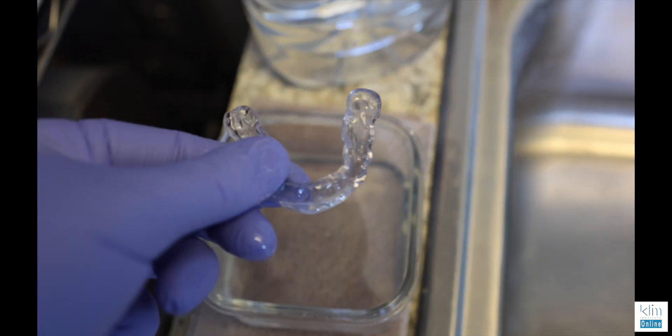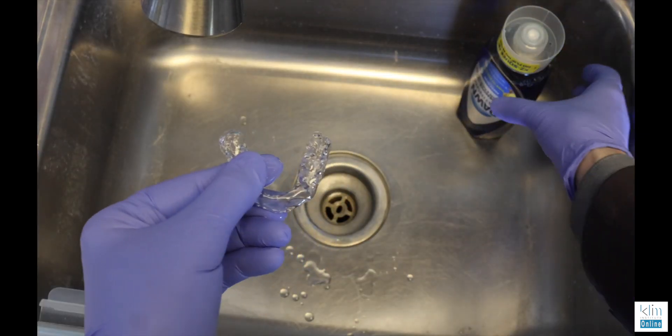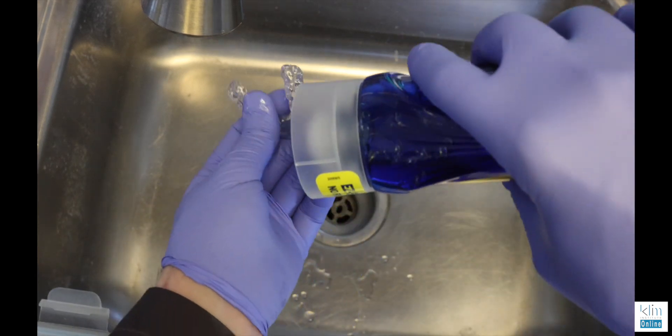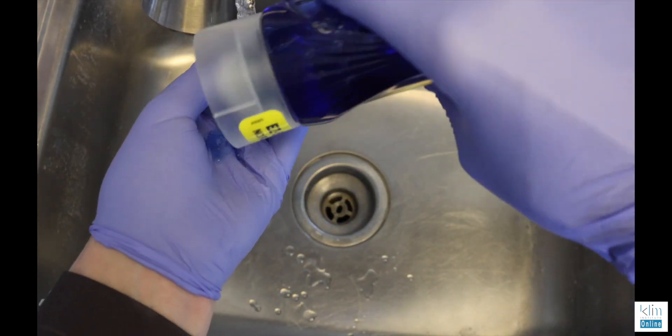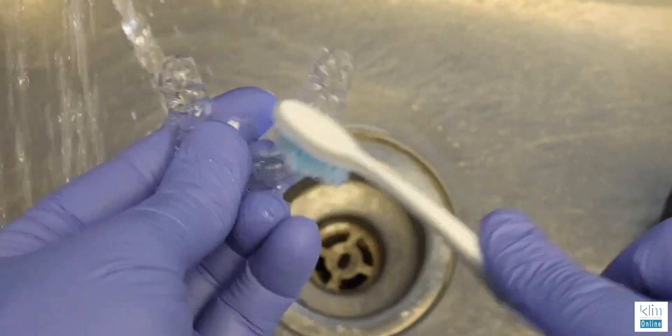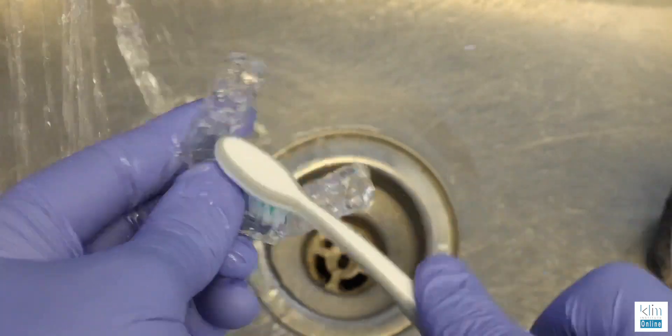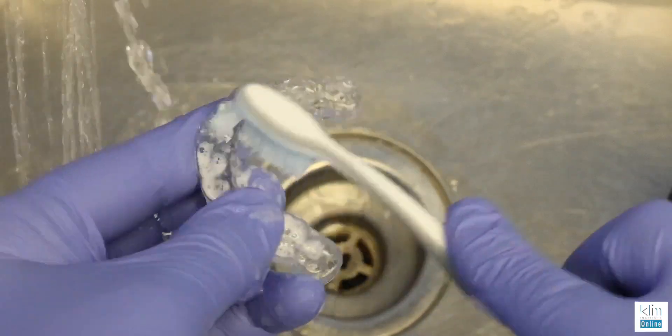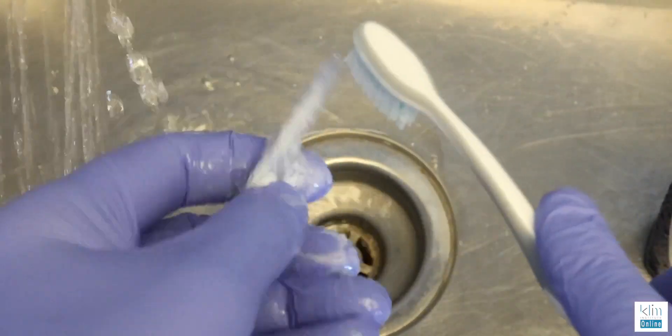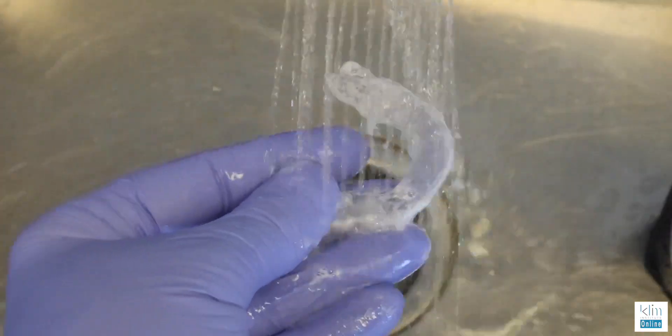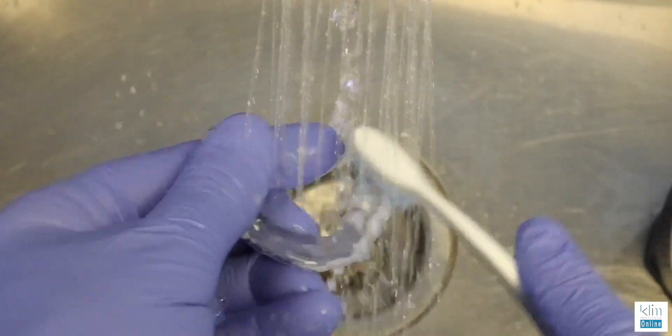Retrieve the appliance from the glycerin. We're going to do the final scrub technique here with Dawn soap. It will remove the glycerin, clean up the appliance, and also remove any type of flavors that could still be residing on that appliance. Following the cleaning of this appliance, which was for me, I immediately placed it in my mouth and there was no flavor whatsoever and it was smooth as ice.